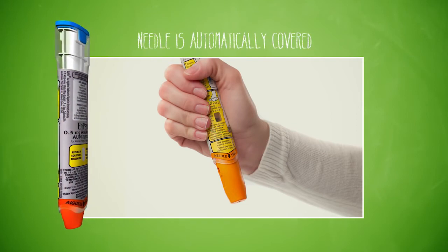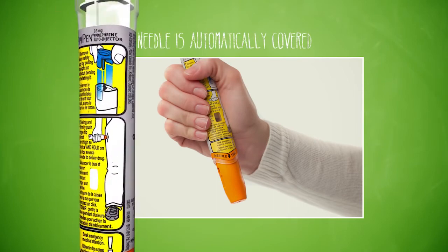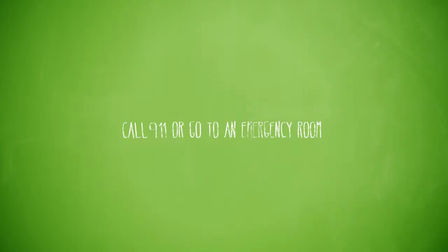Remember that using EpiPen does not replace seeing a doctor or going to the hospital. The effects of epinephrine can wear off or you could have a second reaction. So call 911 or go to the emergency room right after using EpiPen.